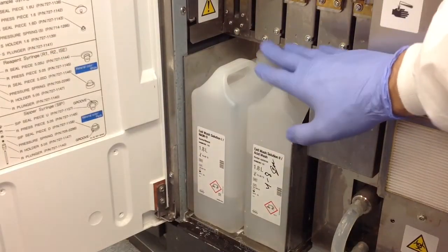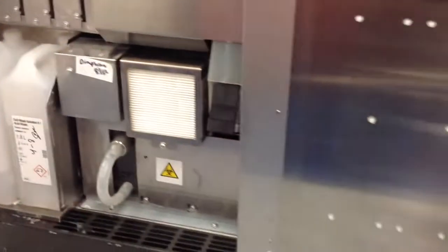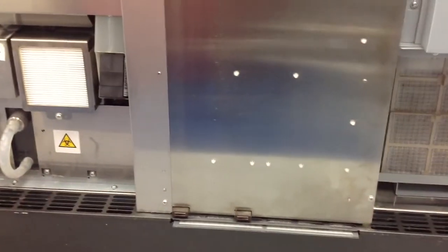You would do the same exact thing for your two detergents. Once you're done doing that, you can move on to the various filters.